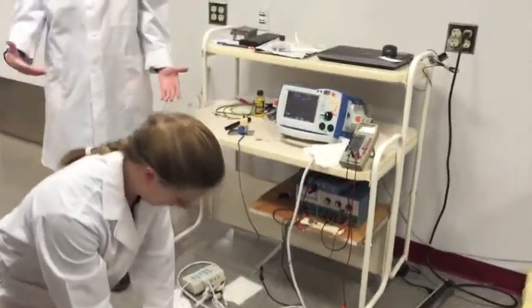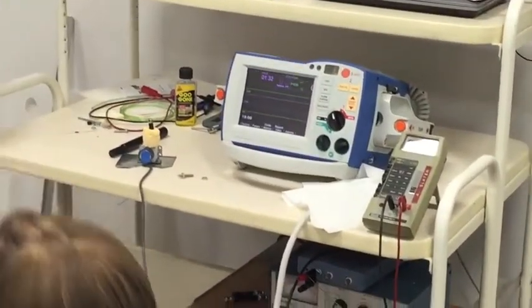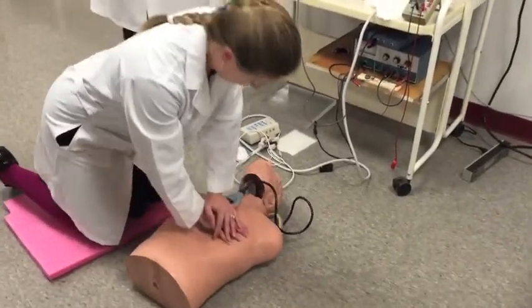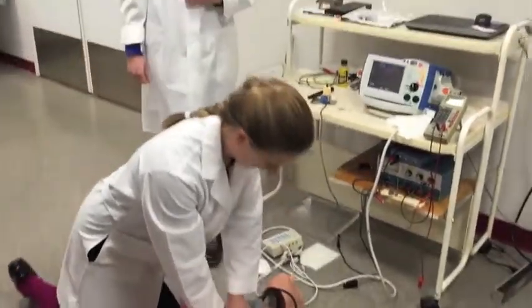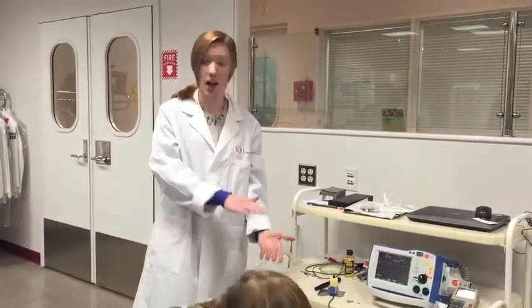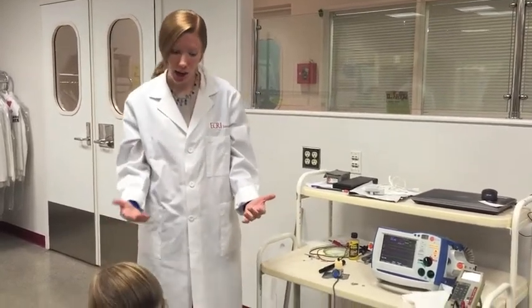This one is great in that it can compensate for mattress compression, but it's also another piece of equipment that needs to be carried along. Any data that you would want to download to see how your performance was afterwards would have to be done separately from the defibrillator.